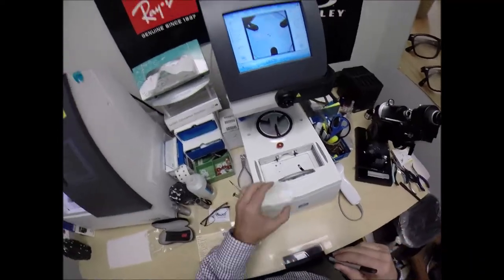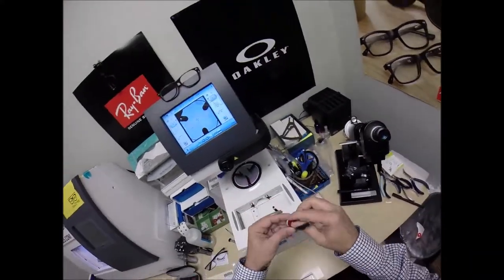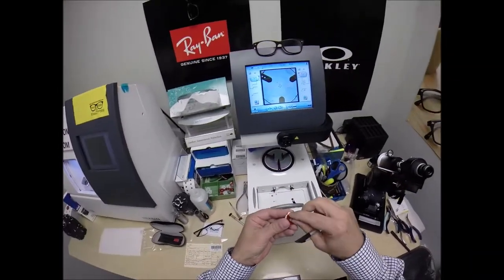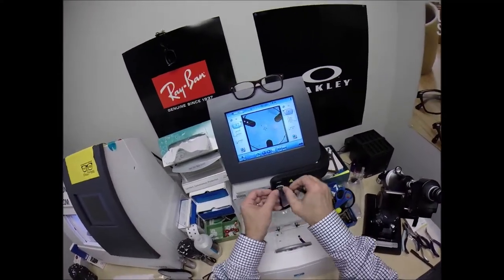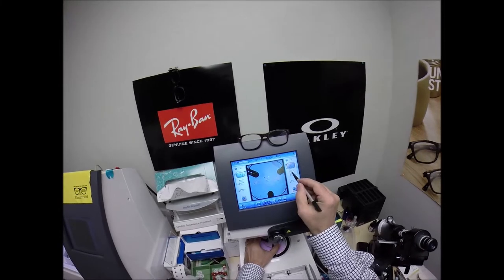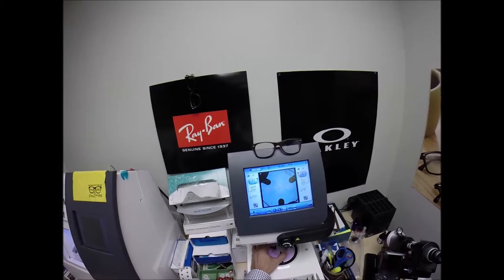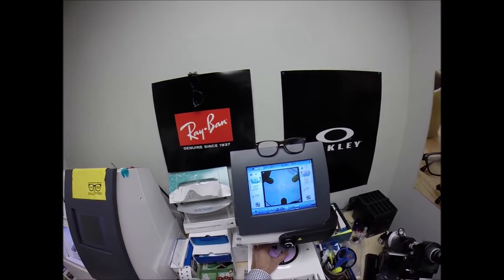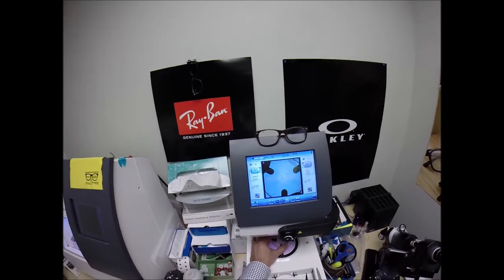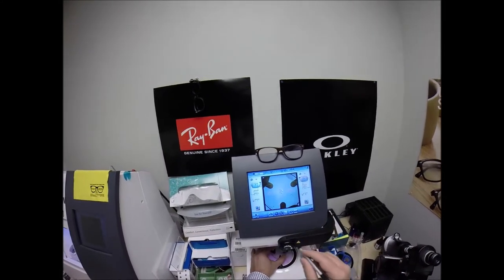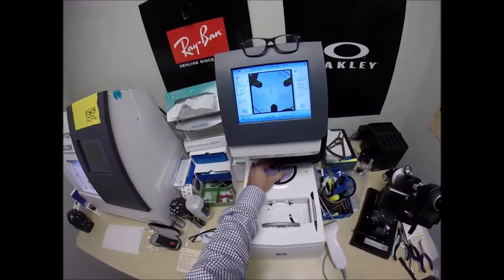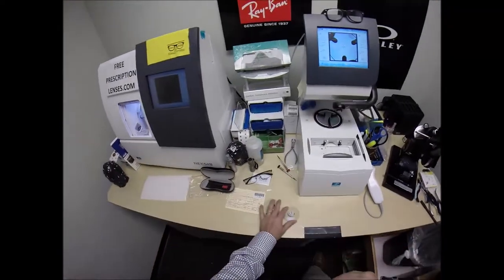We're going to do the same thing for the lens that ain't right, which will be played. The part of the L lens will be played by left tonight. Pull the paper away to make the black side sticky. Line up the magnet. Same pupillary distance, same optical center height. If it were different, I would change that, but because it's not, so I ain't gonna. Put the dot there. Line up those other two dots. Hit the button. The arm comes down and places the block onto the left lens.